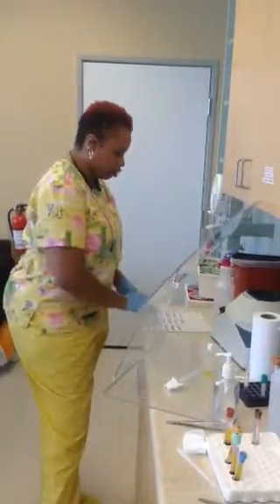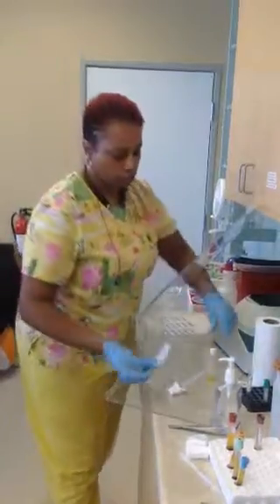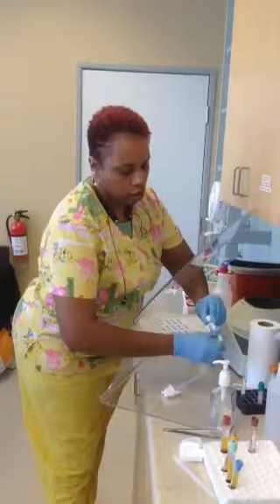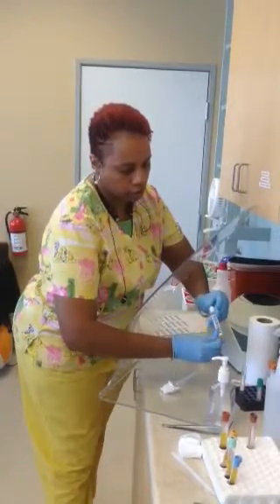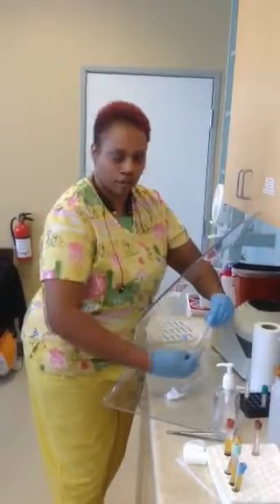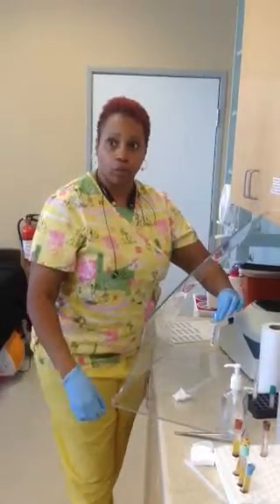Put your label on the tube. Your label should be straight — no scarves where you wrap it and close it, no candy canes where it swirls around. It needs to be straight up and down because they have barcode readers in the lab. What they do is accession this in — just like you scan groceries, same thing happens in the lab. They put a scanner over it, accession it in, and then it goes through its testing.